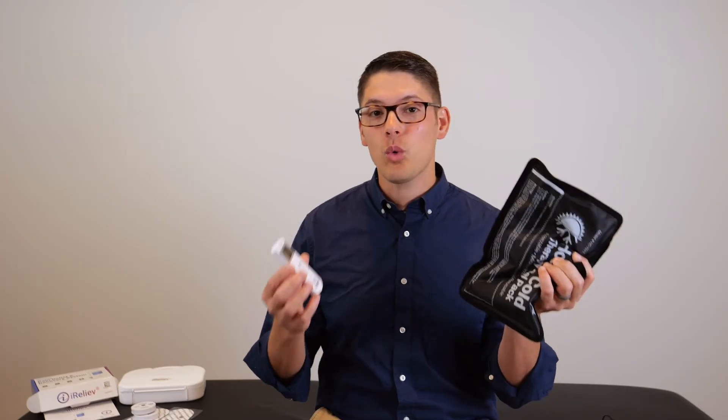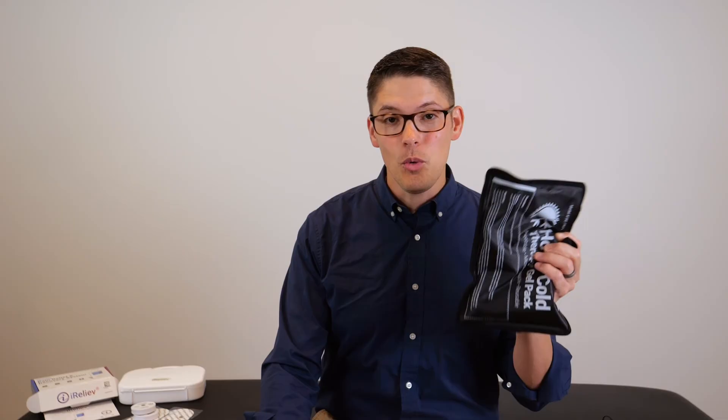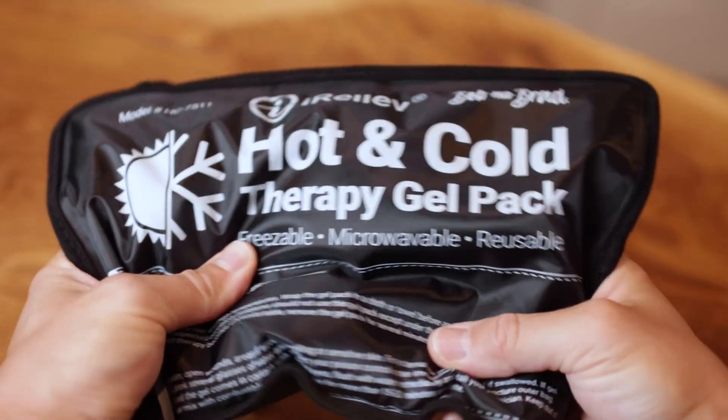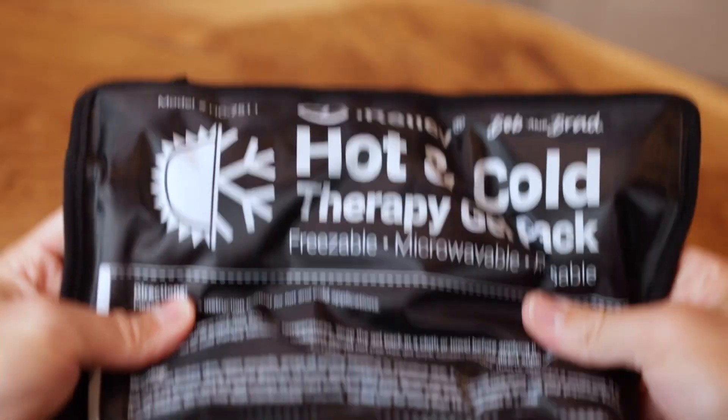Another great option is to pair the TENS unit with an ice pack for about 20 minutes. Just make sure you have a cloth barrier against your skin so that you don't burn your skin with an ice pack. These ice packs are also from iReliev and they pair perfectly with the unit.